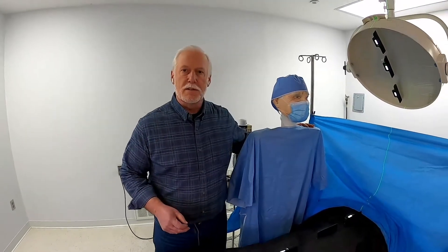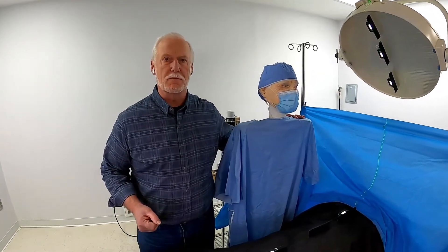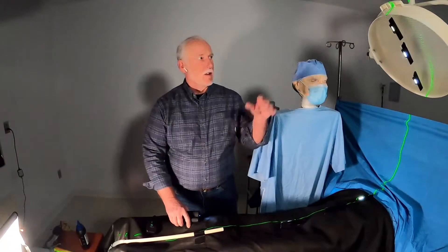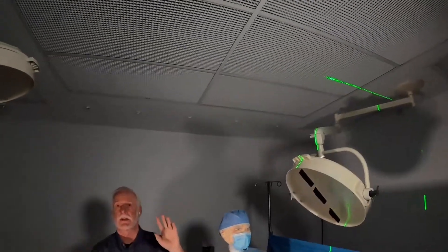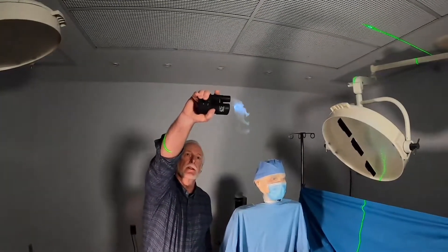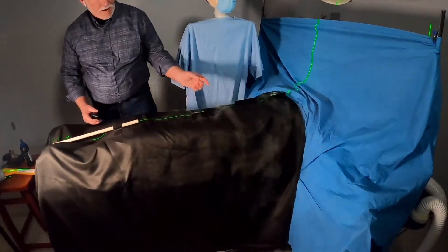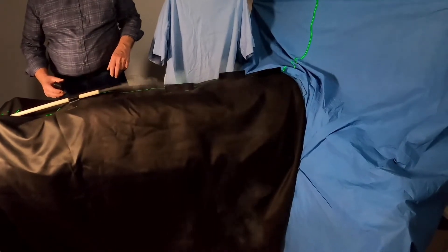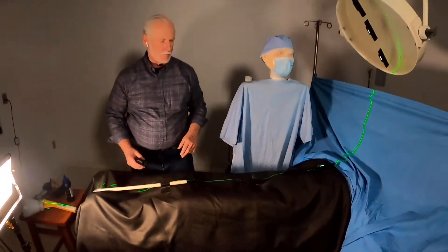I've got my friend the surgeon, Dr. Jones, who has volunteered his lungs to help us show you what happens to your lungs when you stand by an operating room table and work all day long. We're in an operating room ventilation laboratory. The room is a little small, the lights are a little bit small, but the overhead ventilation system up here is laminar flow, the plenum is full size, and it's running. I'll put a little smoke in the air so you can see it's working just fine. If we introduce some smoke onto the surgical field, see how it just goes down the side and away. We've put a black drape here instead of a standard drape just so it can be seen a little better — that is what the normal ventilation system should be doing, taking whatever's on the field, pushing it to the floor and out the side vents of the operating room. That's what normal looks like.